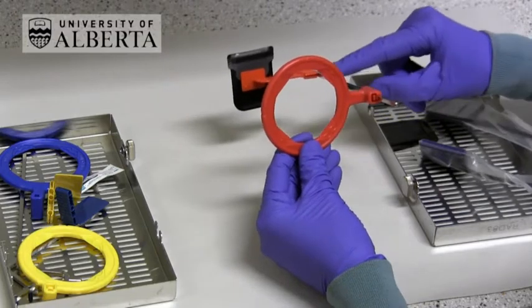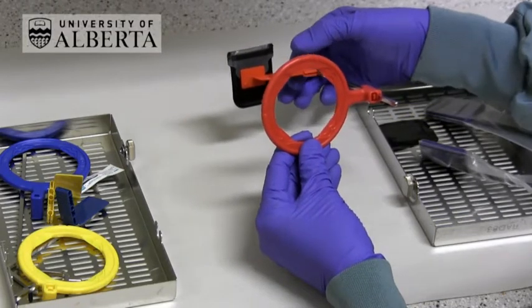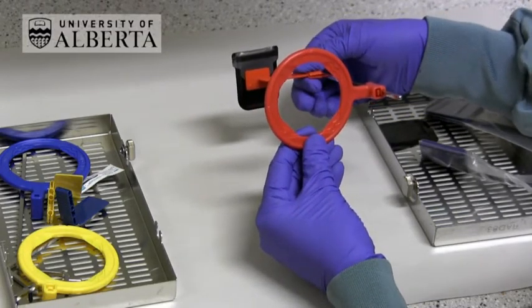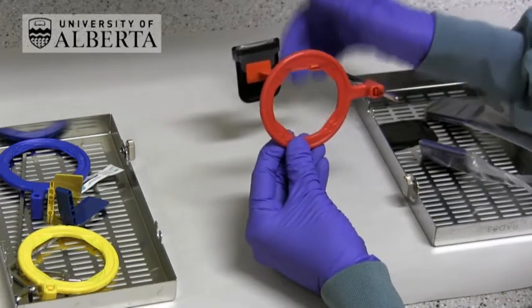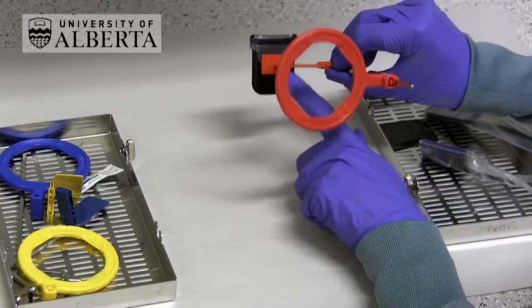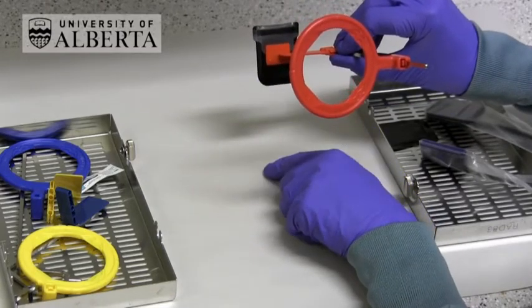We use the same straight rod, the same adhesive bite block, and the same positioning ring as we did for horizontal bite wings, but the difference is that the receptor is held vertically rather than horizontally.